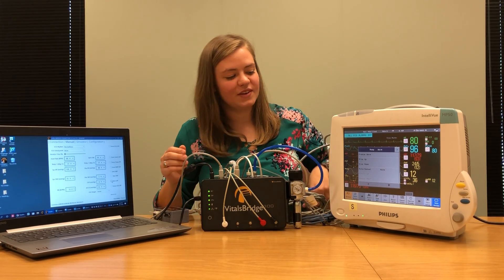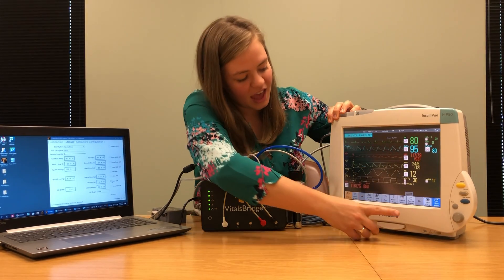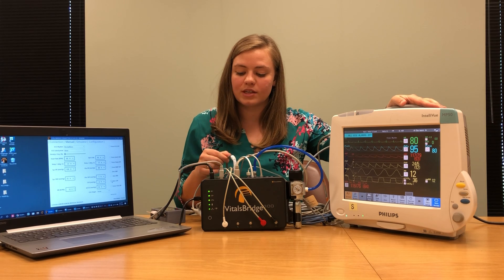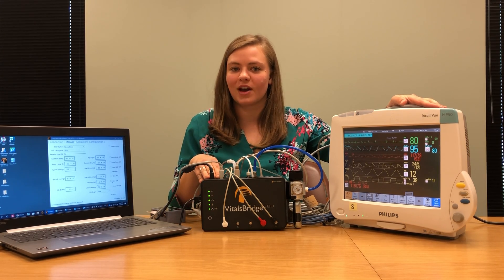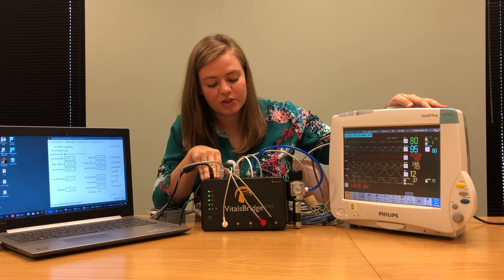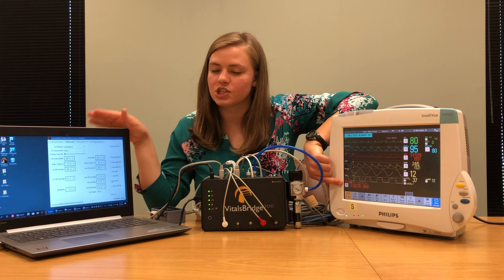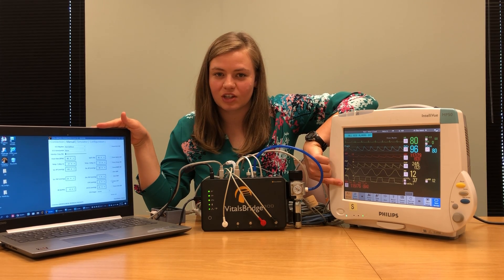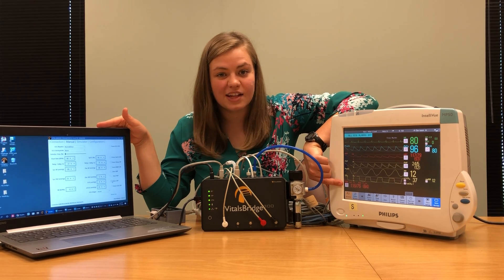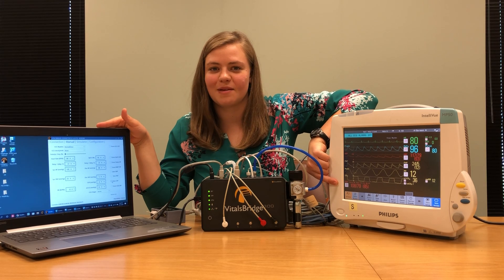Once that's ready, click start non-invasive blood pressure reading. You'll hear your patient monitor begin to make noises as well as some clicking noises on your VitalsBridge. It'll take just a minute for the non-invasive blood pressure reading to go through, but when it does, we should see a non-invasive blood pressure reading that matches whatever we've input on our VitalsBridge connector software. If the reading doesn't match perfectly, just rerun the non-invasive blood pressure cuff reading and it should fix itself.